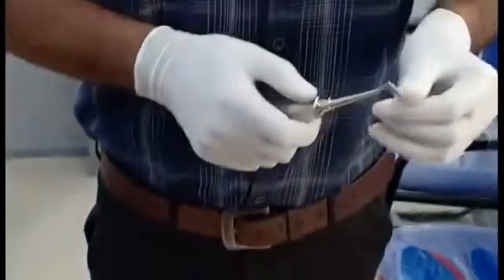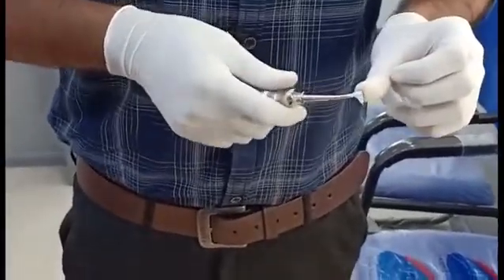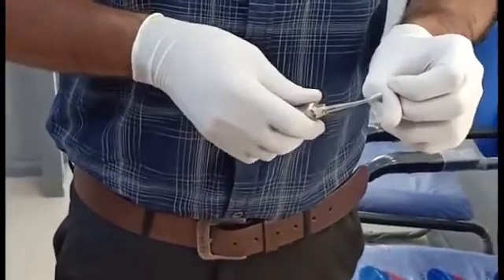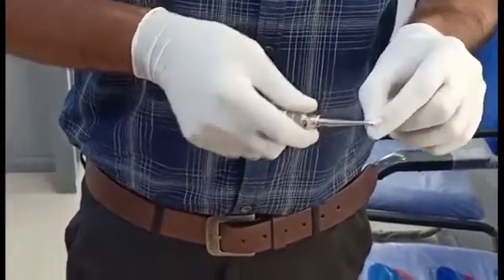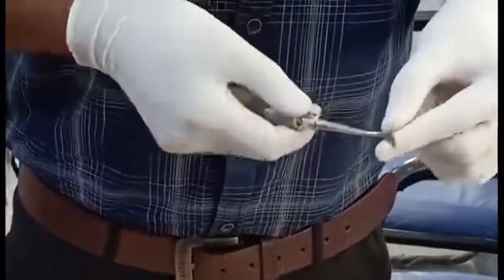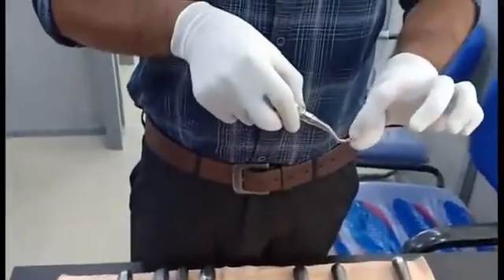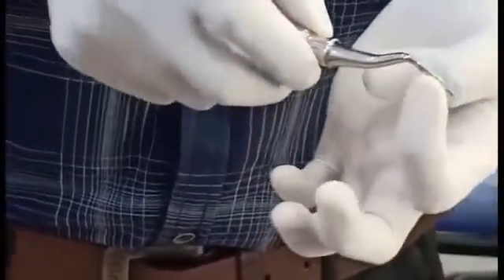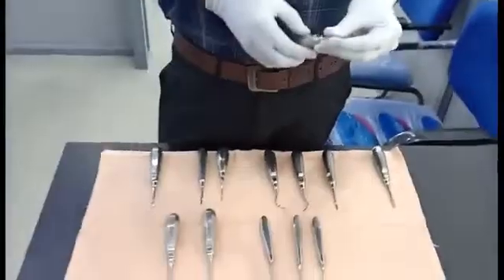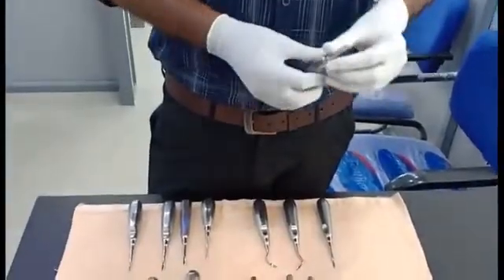The basic principles of elevator use: always we should not use the adjacent tooth as fulcrum unless it is meant to be extracted. We should always keep our finger as fulcrum. Never use the gingival line, buccal, or lingual plates as fulcrum because they might get fractured during extraction. Always the concave surface should be towards the tooth and the convex surface away. Elevators are always used in combination — wedge and lever, or wedge and wheel and axle principle.